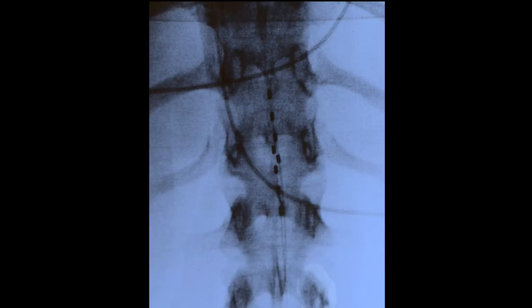They also all have some lead wires, which vary — some may have anywhere from 8 to 32 lead wires. This is what attaches to the spinal cord and delivers the electric pulses.